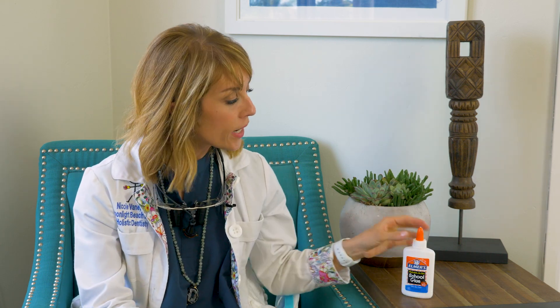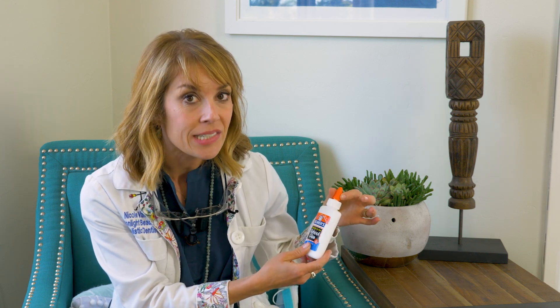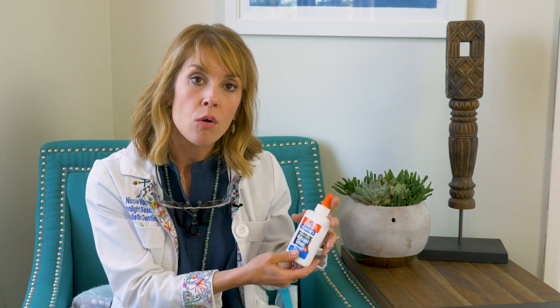I don't know what happened to Zach, but I'm sure he's fine. The reason it's great is it also has a very little tip on it so it's easy to dispense, and its viscosity flows so that you can't really get too much in where it's going to prohibit you getting the crown back in. A lot of the temporary cements that your dentist may tell you to get at the drug store are really hard to mix, and they're also typically mixed incorrectly — patients put so much in that they end up getting it stuck all around their teeth and jaws, or they simply can't get the crown back in, or their bite's really high after because the cement is so thick it's holding the crown up.